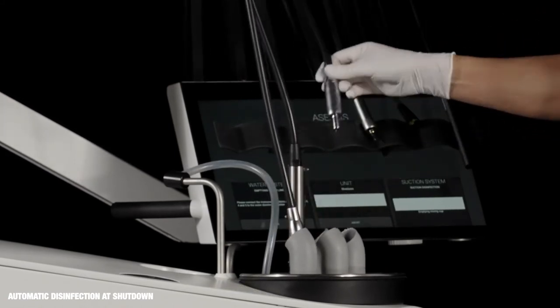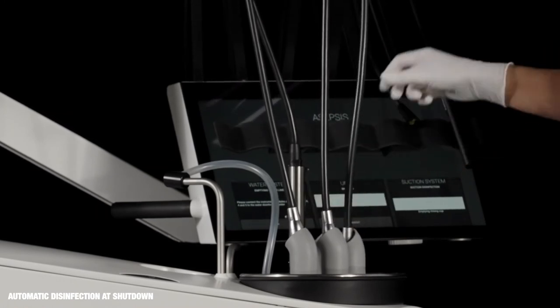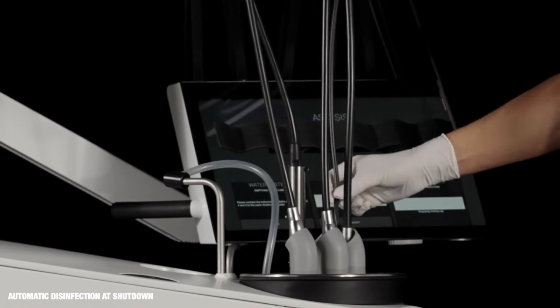Next morning, when the unit is switched on, it automatically finishes the disinfection of the water and suction lines.